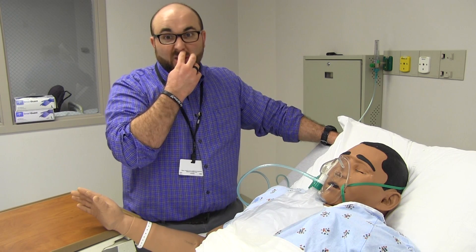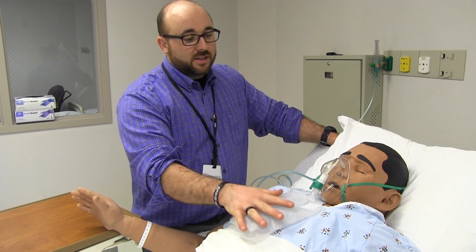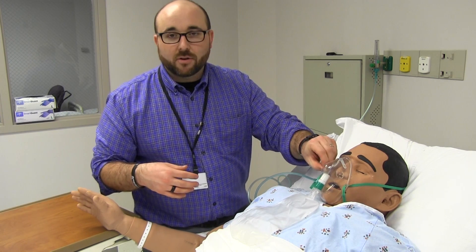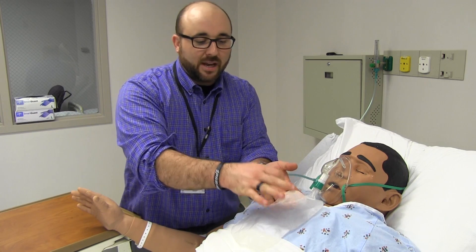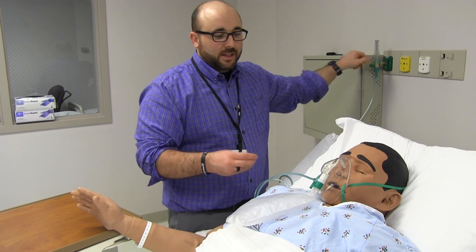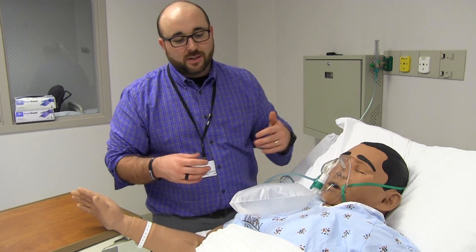If you're watching soaps with your non-medical partner, the cool thing about soap operas is this is where you can always catch them being non-authentic — every time they put somebody on a non-rebreather on the soaps, it's always deflated. If they ever wanted to consult a respiratory therapist or a nurse, they'd just pipe in some external air to make this more realistic by having the bag inflated. In real life, this is always inflated. You'll also notice some little pieces of diaphragm covering the holes on the mask, which actually increases the FiO2 you're delivering to your patient.